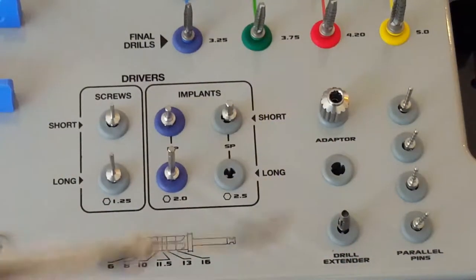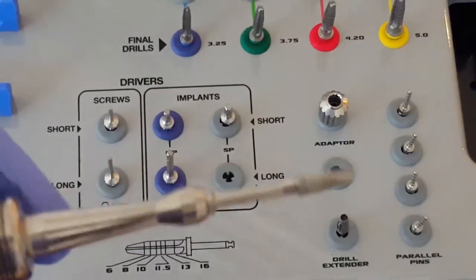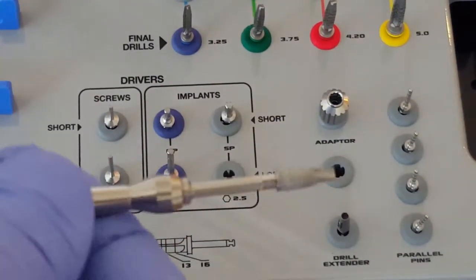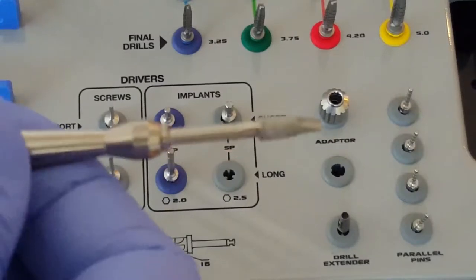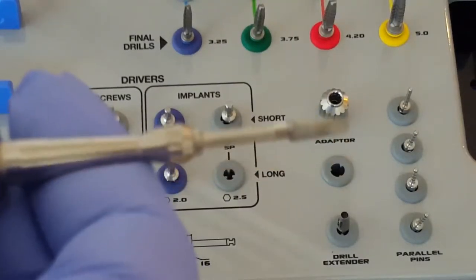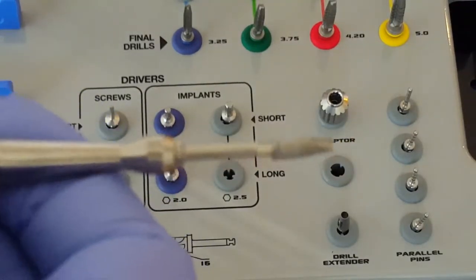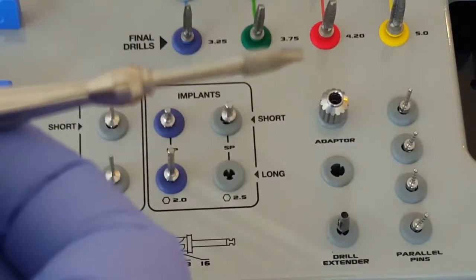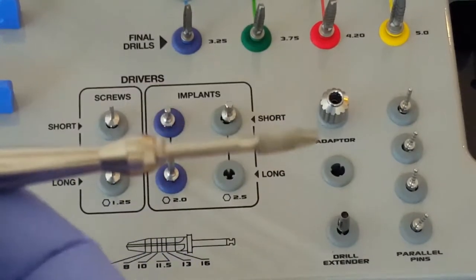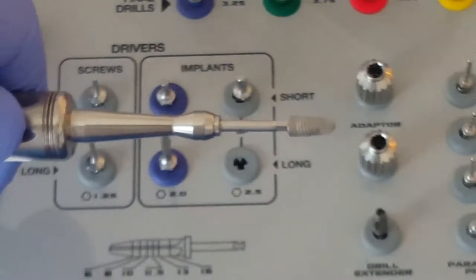Again, securely in place. This can be rotated, and you can hand adjust and hand place the implants using the hand driver, which is very nice, especially when placing implants in the anterior maxilla.